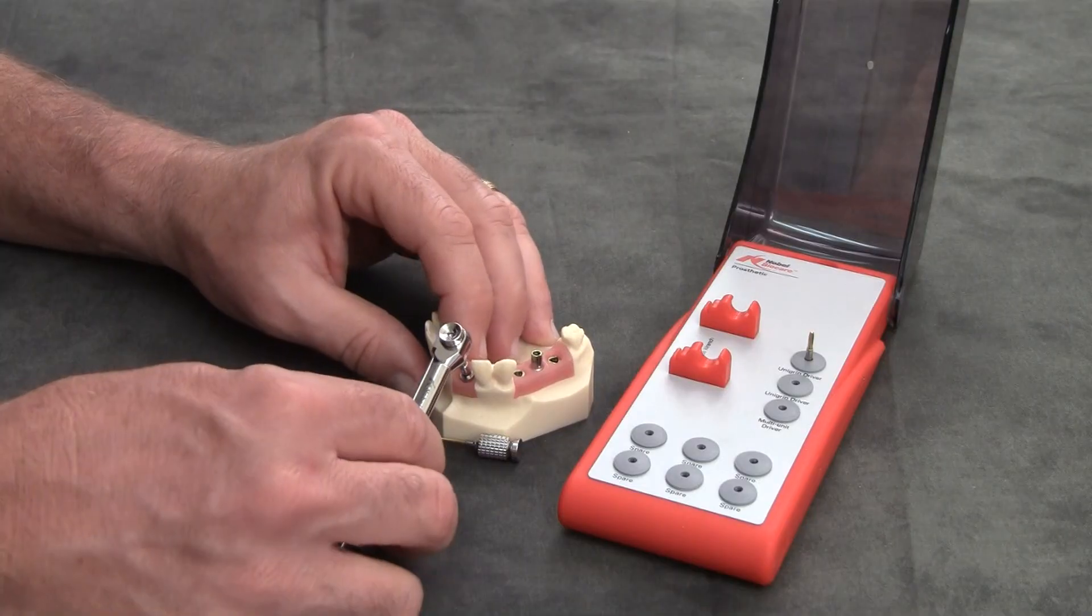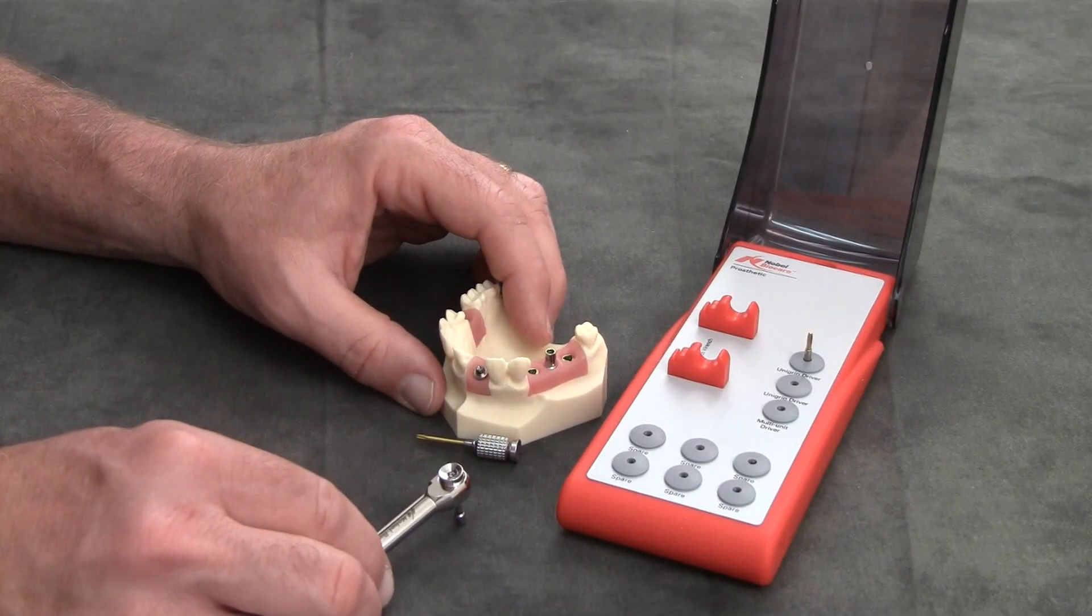And torque it to its proper level. Clinically, it will be 35 newton centimeters of force for a straight abutment. I don't want to lock it in here.